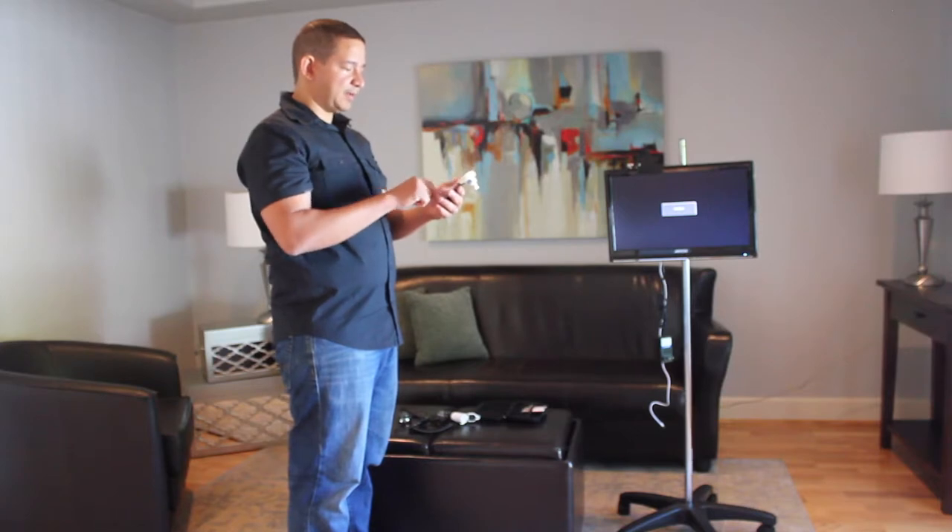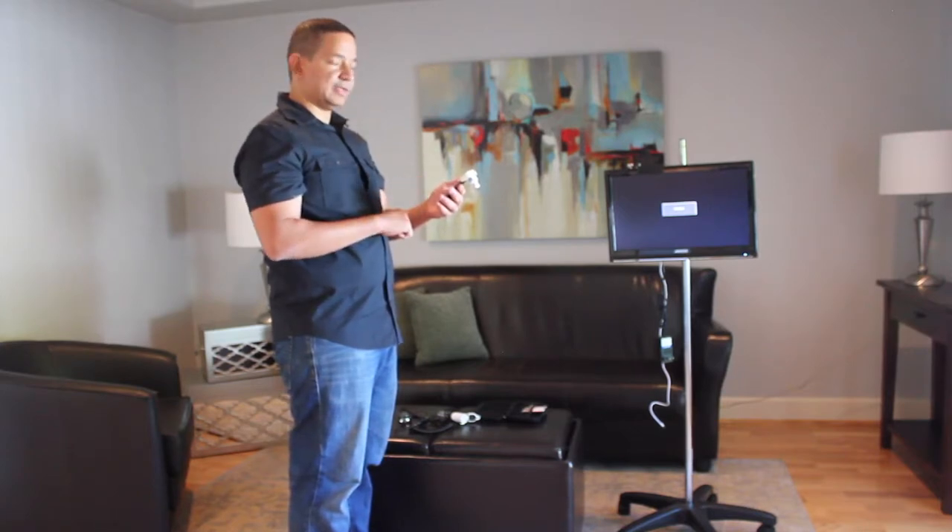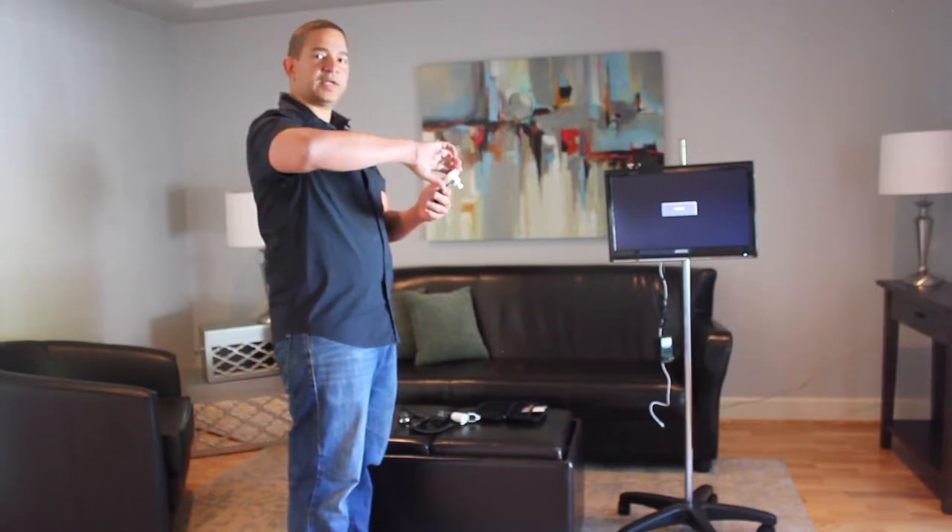You'll go to the menu, switch the camera to the back camera, and turn on the flashlight. And now you're ready to use this as an otoscope.